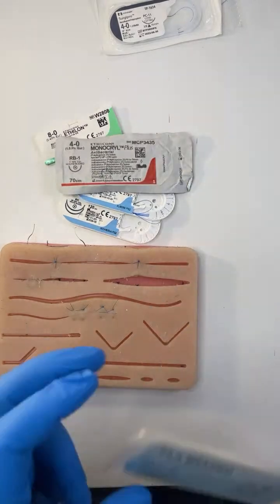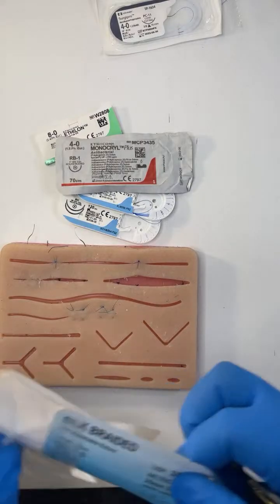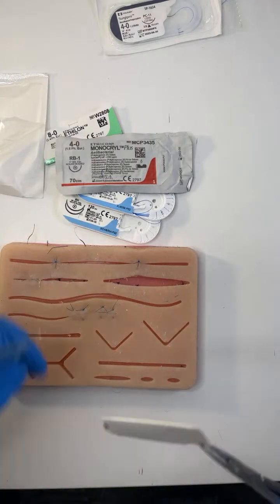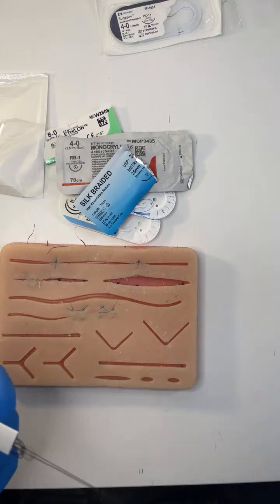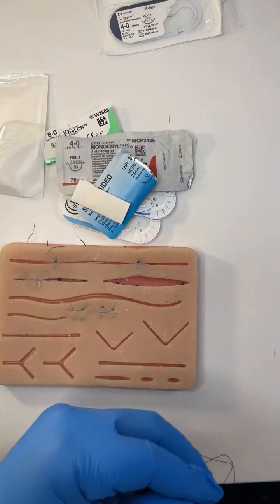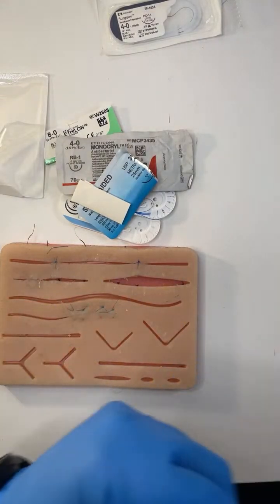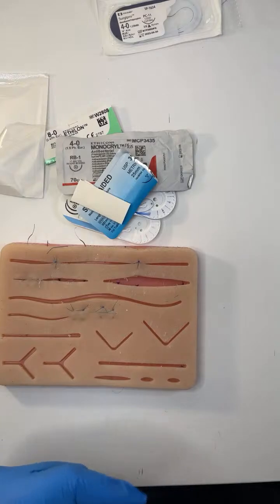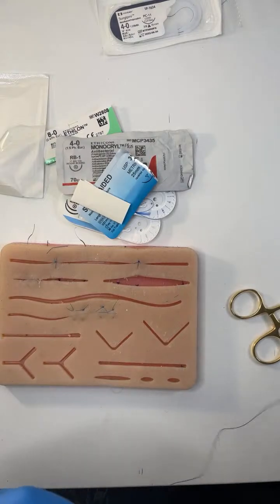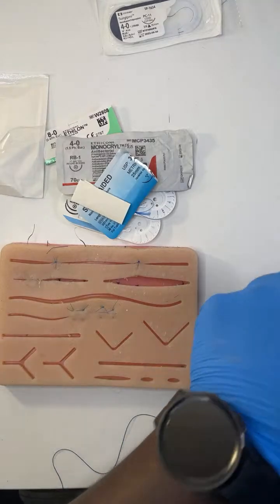Then the next thing: if I haven't got much suture selection, do big stitches and get something non-dissolvable. And if it's trauma, it's not about aesthetics — it's about getting the wound closed. There will always be a scar; I just need to reduce the gap between the skin edges to reduce the size of the scar and reduce time to healing. So if I haven't got access to deep sutures like Monocryl or Vicryl — which sometimes happens in acute emergency departments where you haven't got everything you get in theatres — get a non-dissolvable suture and do this.